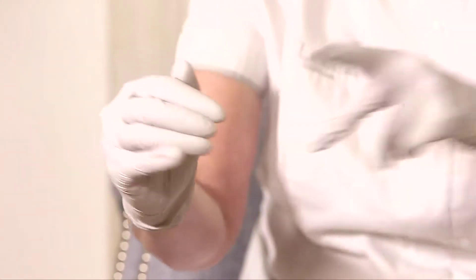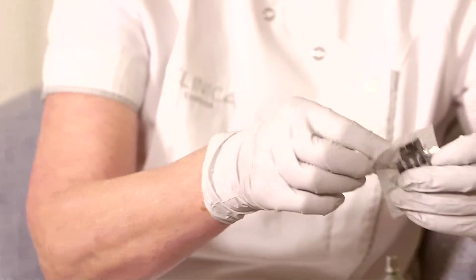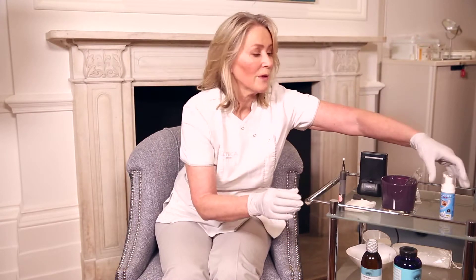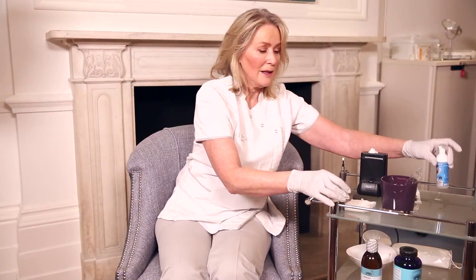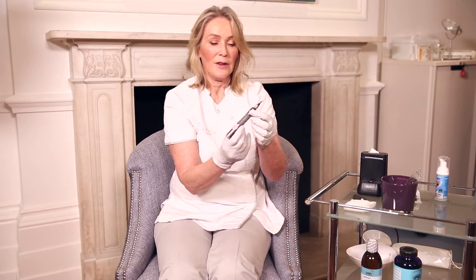So let's pretend I've got a patient here. We open up the little sponges, put one in the machine, and then there's a special foam that's used to soak it. So it's a dry sponge at the moment, and that's now going to be a lovely soft sponge, like that - and then that's going to spin.